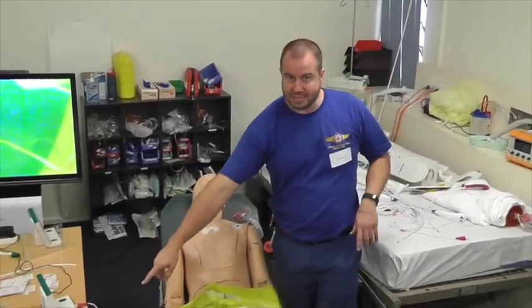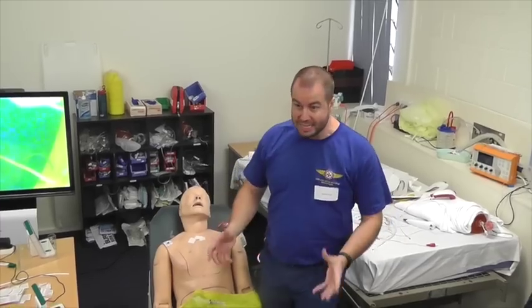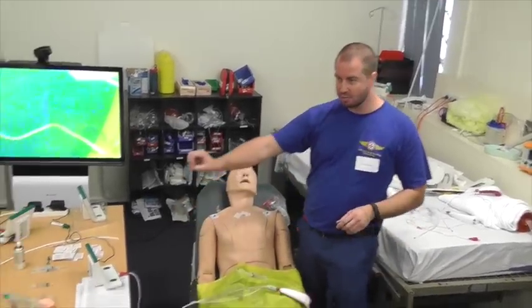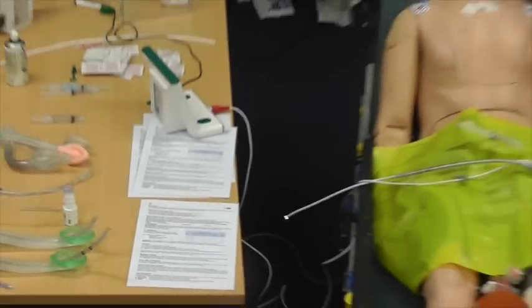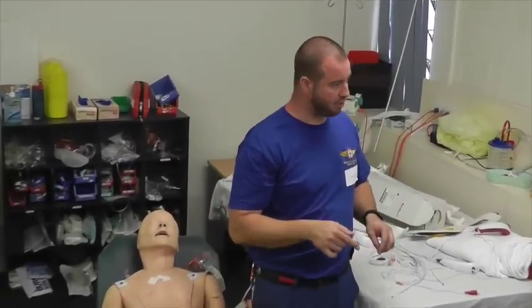So there's all of that stuff in our kit, and it works together for a reason. There are cheat sheets in there, and there are dose cards and all sorts of things to be able to identify what things you can use together and dose limits for local anaesthetics. And if you're not familiar with the kit or you're not happy and you want to discuss it with someone, you can always bring the SRC, the Senior Retrieval Consultant, on, because these cases you're going to have time to talk about. Okay?